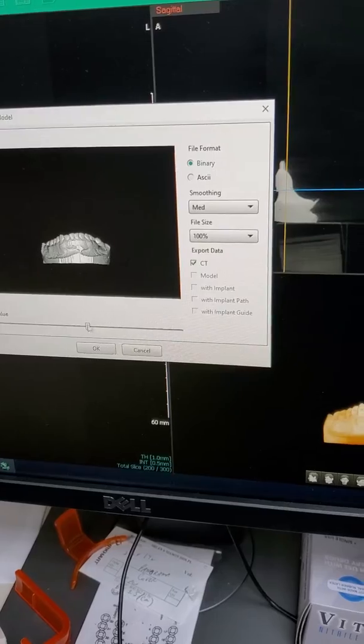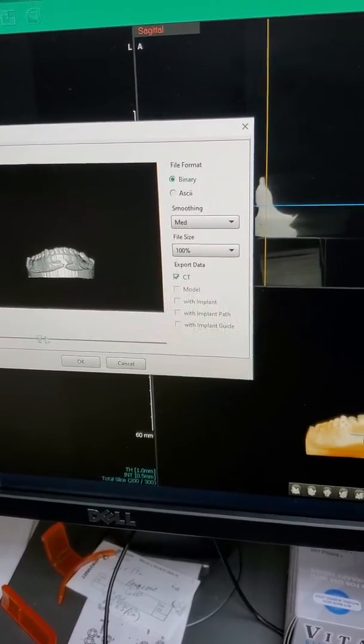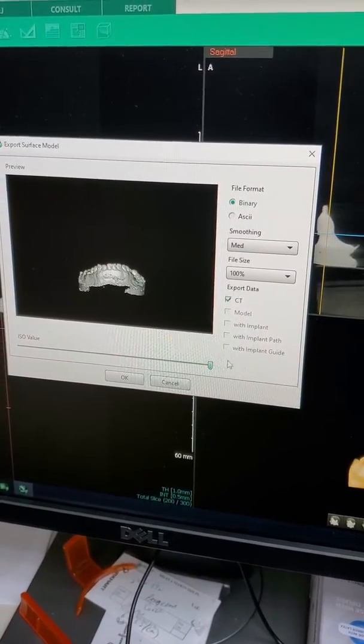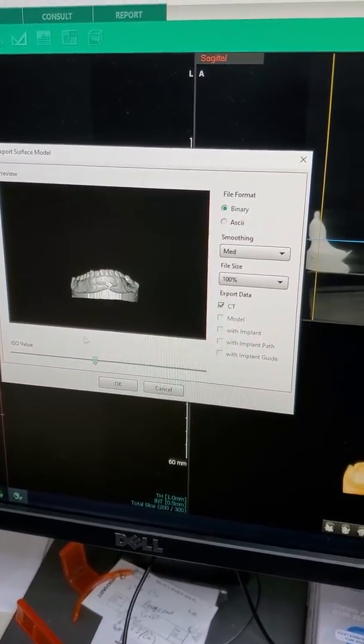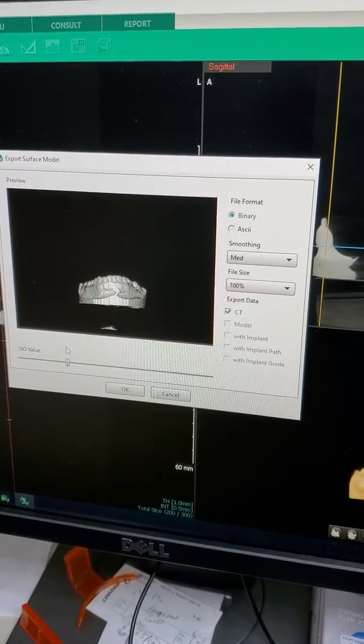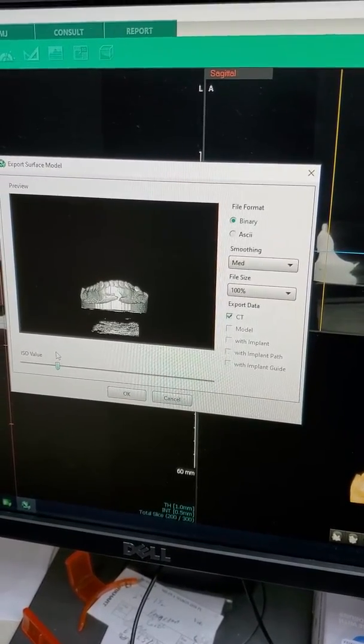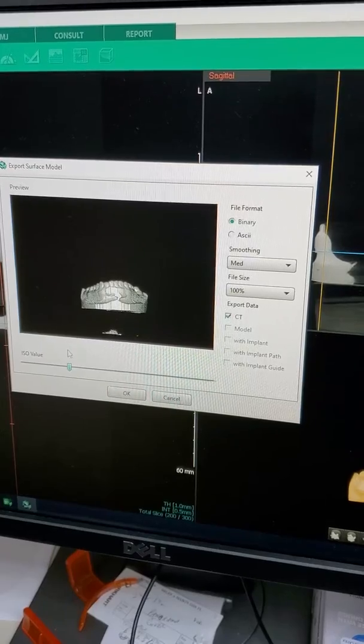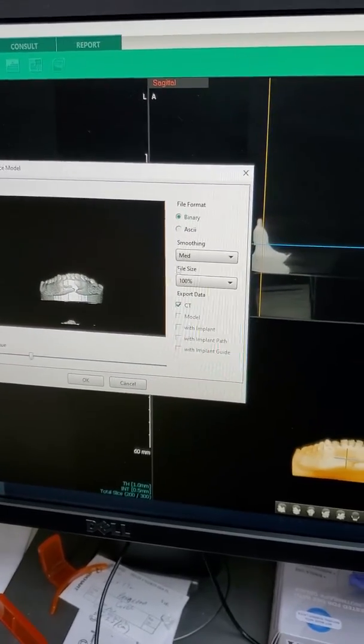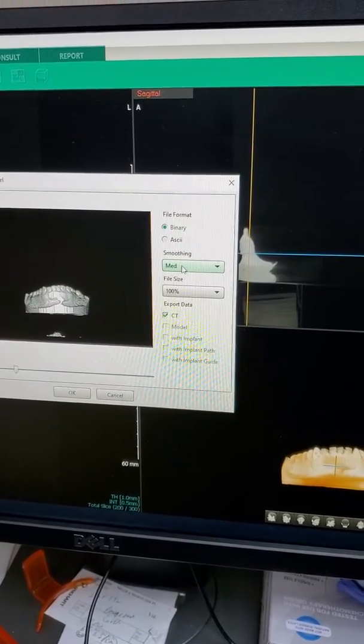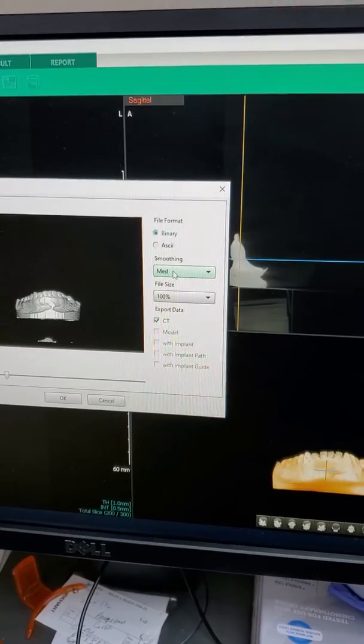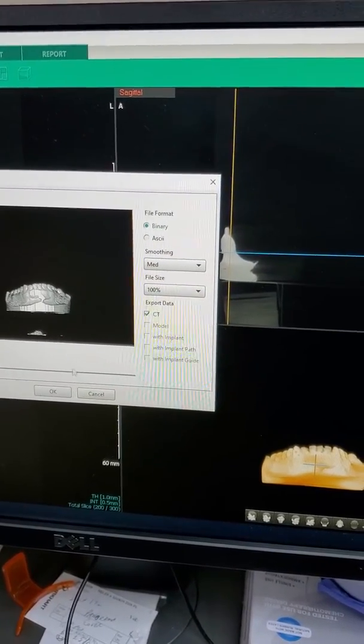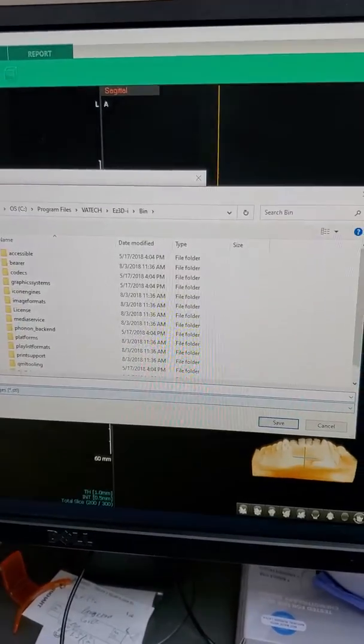Here you can use the slider to go back and forth, and you can show less or more of the model. We want to show a lot to start with. We don't want the holder, but we want the rest to make it easy to clean up. For smoothing, the more smoothing you do, the less accurate it is. At the end, you want the biggest file size for the CT and click OK.